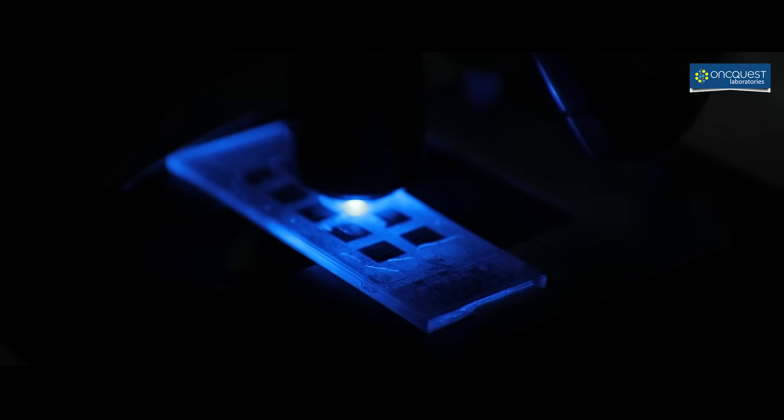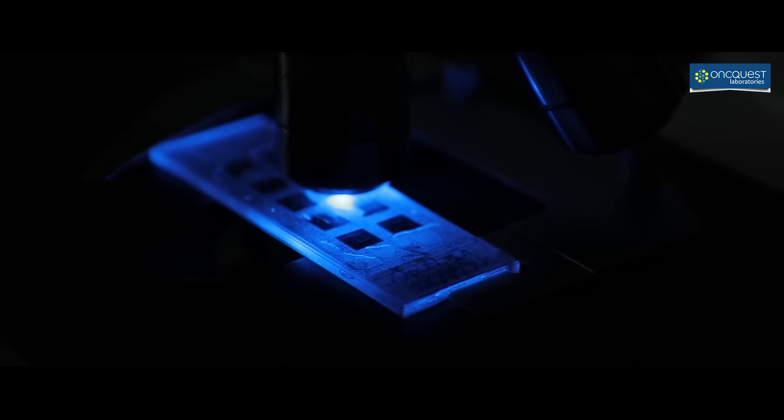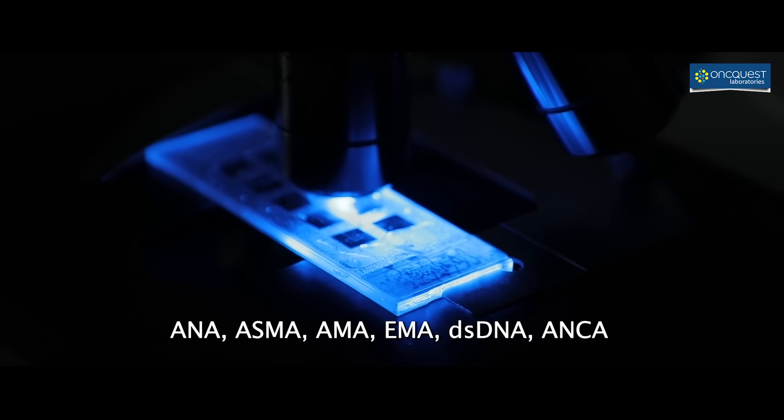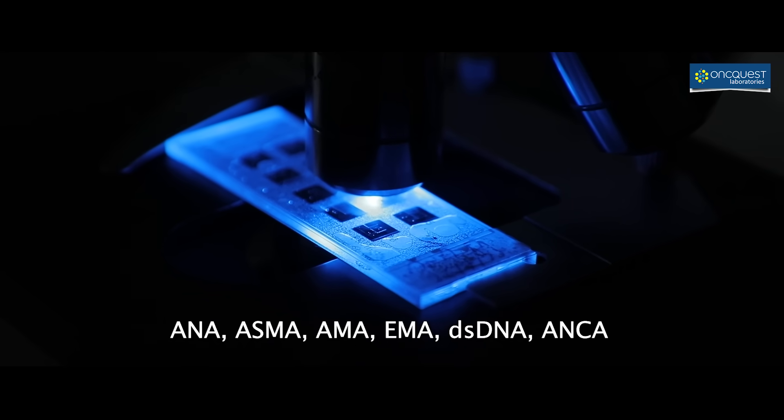Indirect immunofluorescence for autoimmune antibodies is being offered, which includes ANA, ASMA, AMA, EMA, DSDNA, and ANCA.